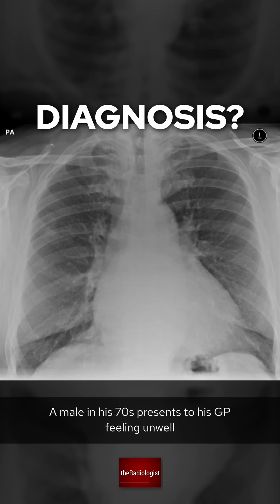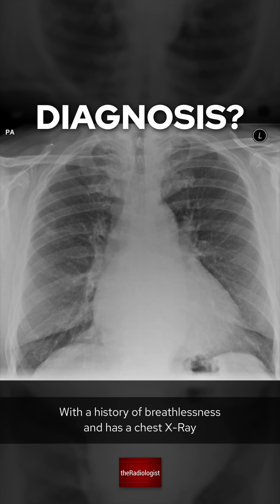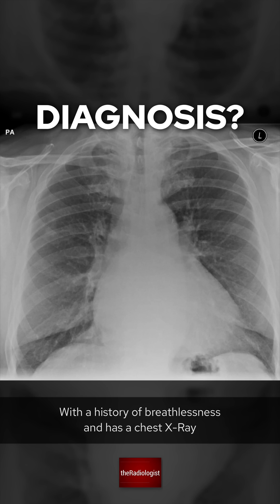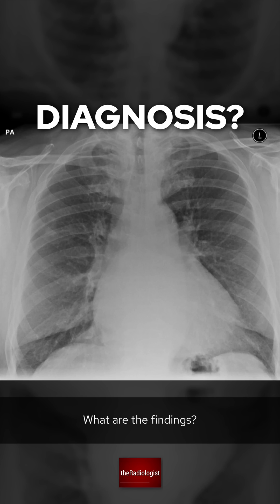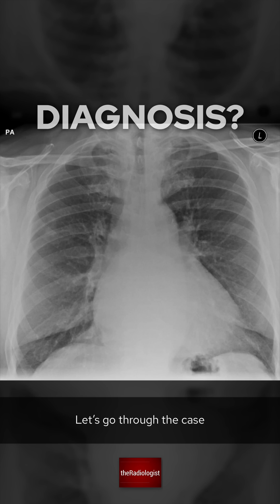A male in his 70s presents to his GP feeling unwell with a history of breathlessness and has a chest x-ray. What are the findings? Let's go through the case.